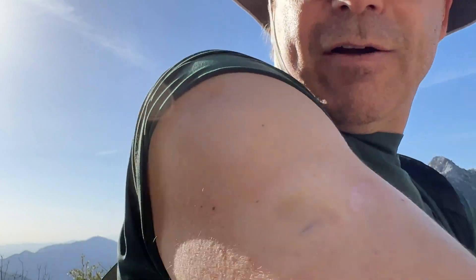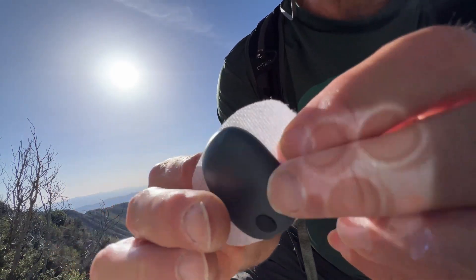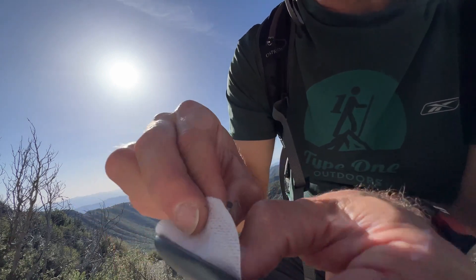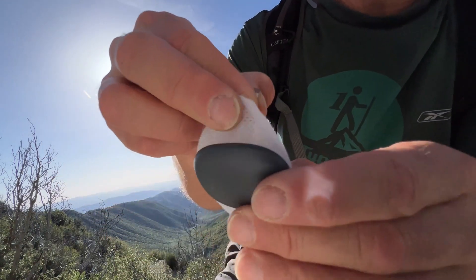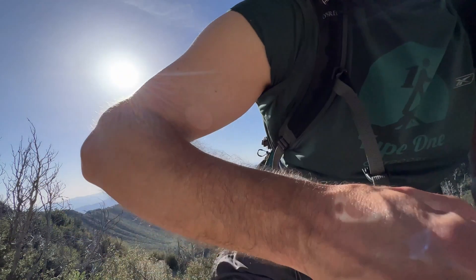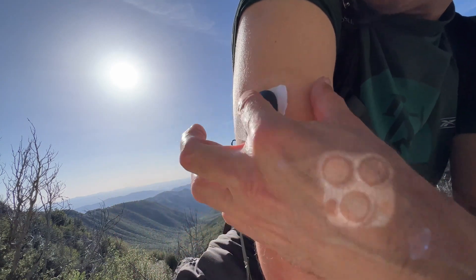Currently I'm on MDI. Since I'm not using a pump and not using an adhered CGM, this transmitter can be removed whenever I want. I get to take a naked shower every single day — how cool is that? It uses a double-stick silicone adhesive that sticks to the back of the transmitter and then onto the skin, right on top of where the sensor is.